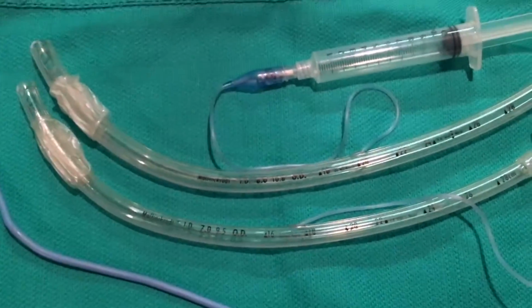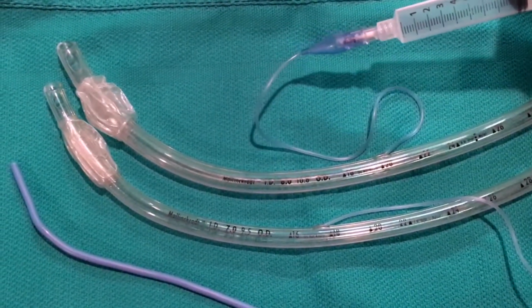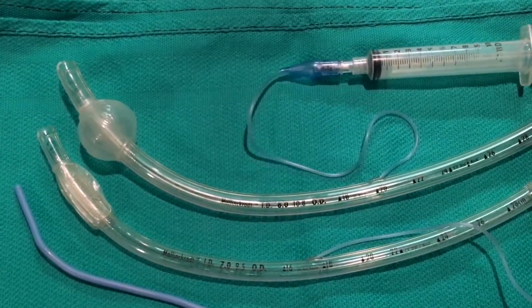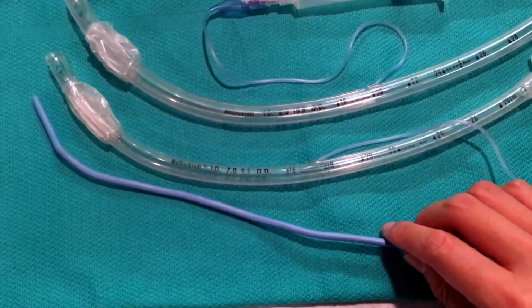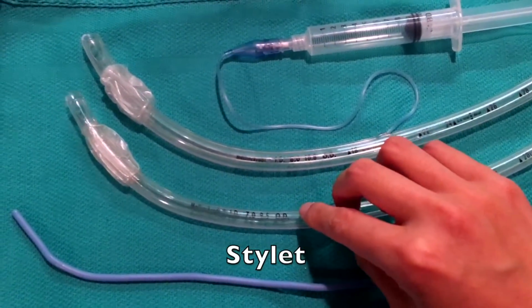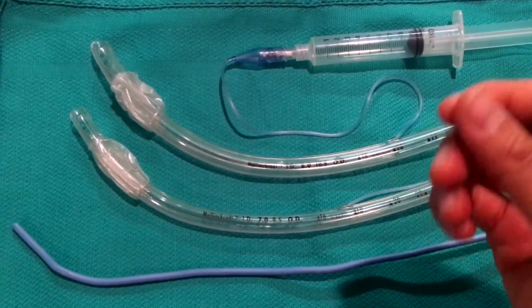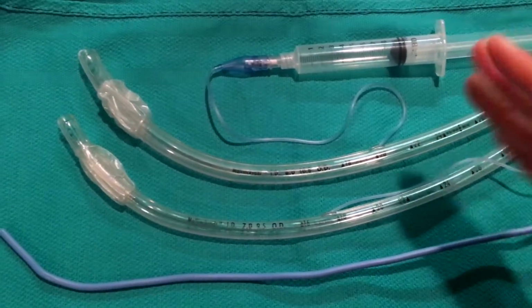One thing you should do before you insert the ET tube is to check and see if the cuff has a leak. You do that by inflating air, and as you can see, it looks good. There you go. And then there's something called a stylet. This is very flexible, which is good, but sometimes we need it a little bit firmer for when we insert it. If you place this inside the ET tube, it allows for an easier way to insert the ET tube without it being too flexible.